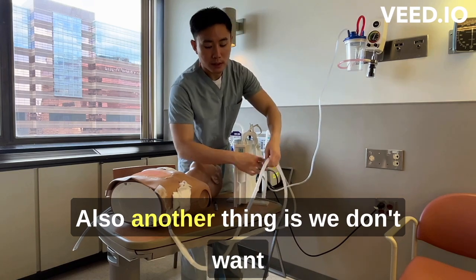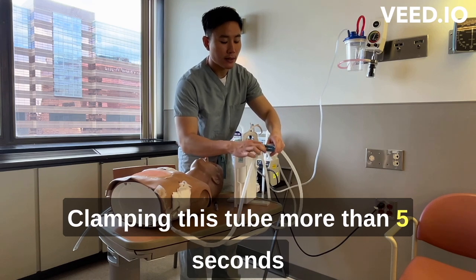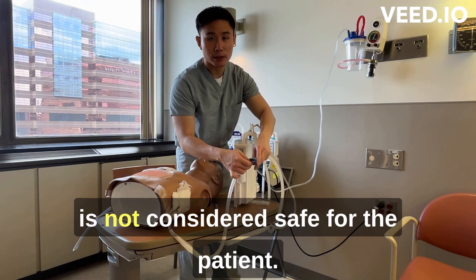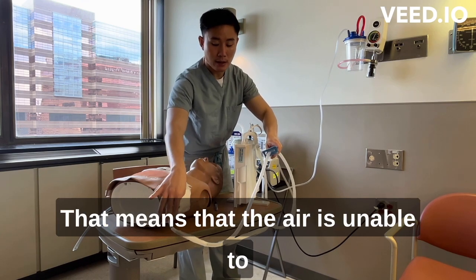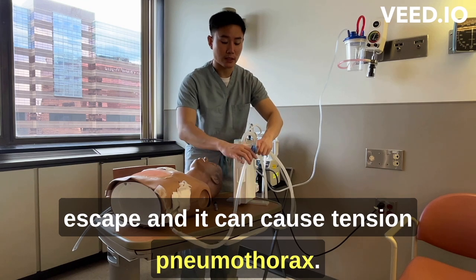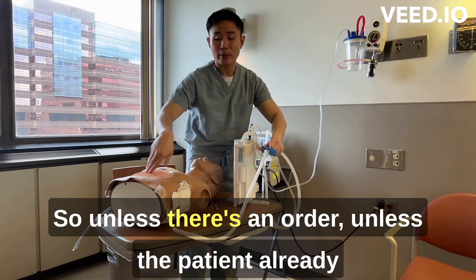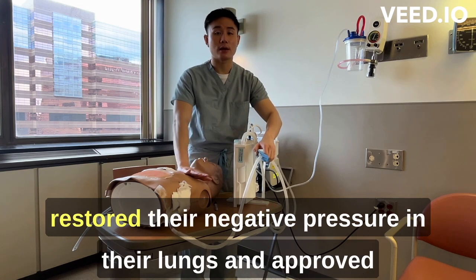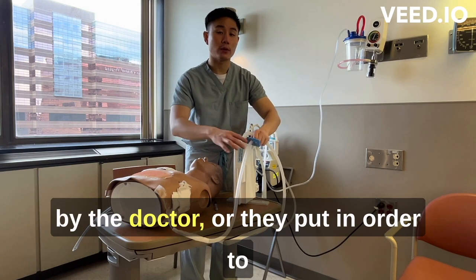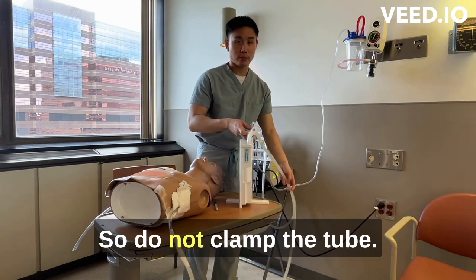Another important point: we do not want to clamp this tube for too long. Clamping the tube for more than 5 seconds is not considered safe for the patient, because it means air is unable to escape and this can cause a tension pneumothorax. Unless there is a doctor's order — for example, if the patient has already restored negative pressure in the lungs and the doctor has approved clamping — do not clamp the tube.